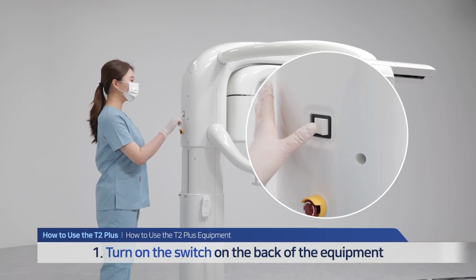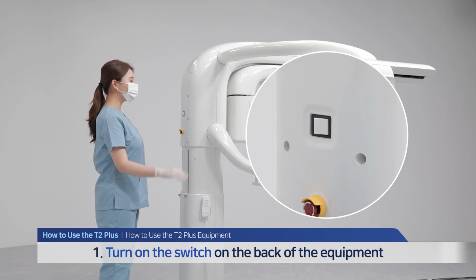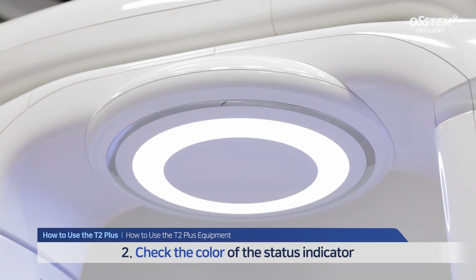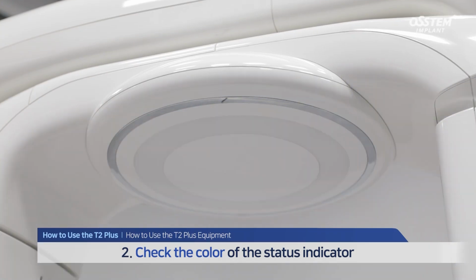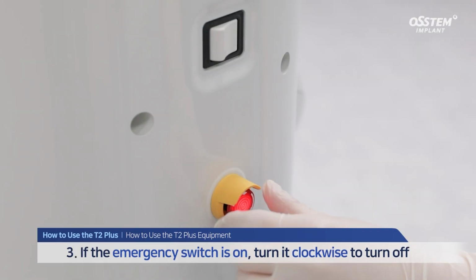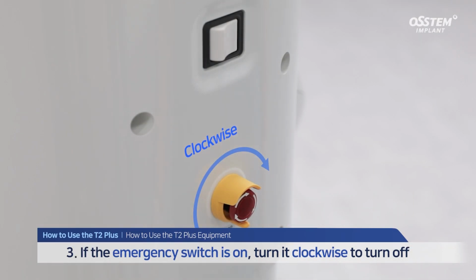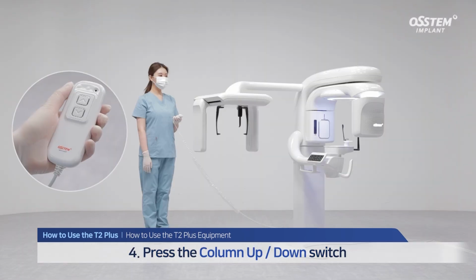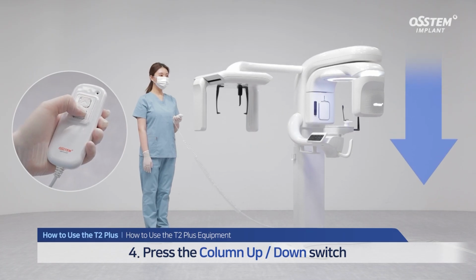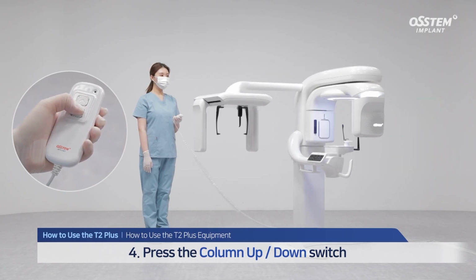Turn on the switch located on the back of the equipment. A white light illuminates when the equipment is in normal operation status. If the status indicator is illuminated red, turn the emergency switch on the back of the equipment clockwise to turn it off. Press the column up or down switch to confirm its proper operation. You can adjust the height using the up or down switch on the side of the equipment.